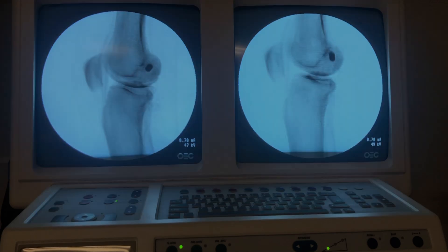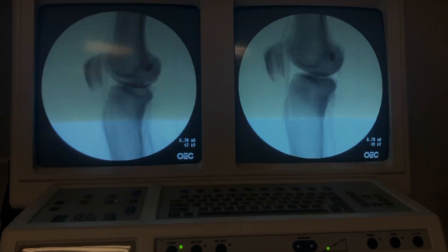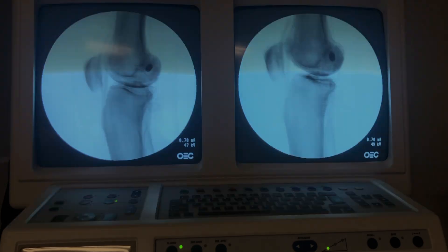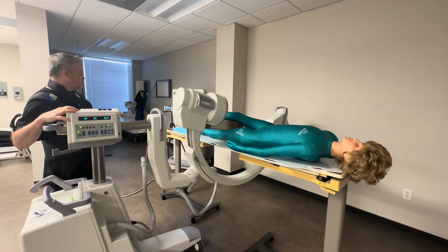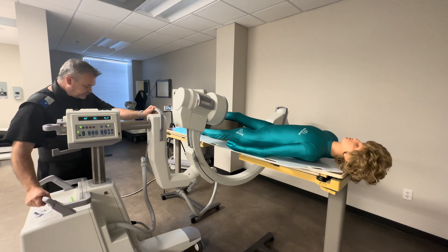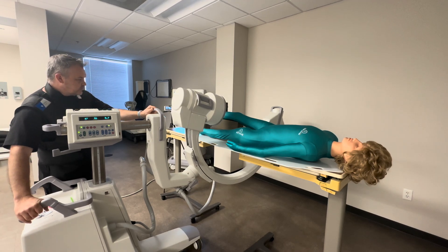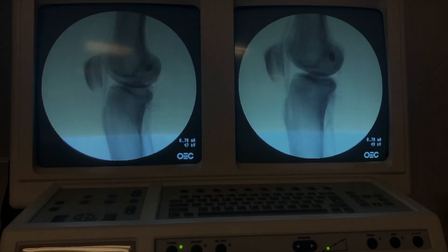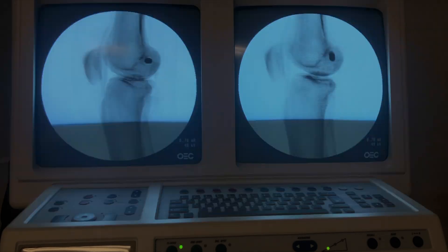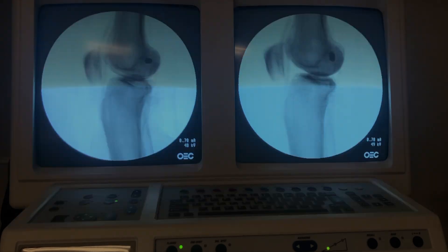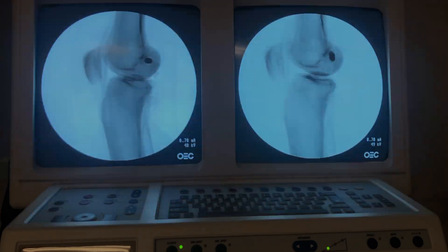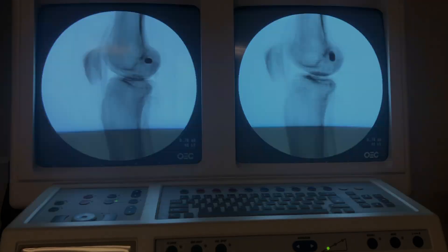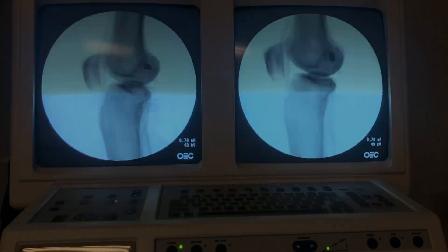Here we can see anteriorly and posteriorly we have pretty good alignment, but I'm going to focus on my wag now. The superior-inferior misalignment is what needs to be corrected. Let me take some of the wag off — wagging towards the feet, slide north. That's better, it's closing up. Let me dial that in a little bit, and that looks better.